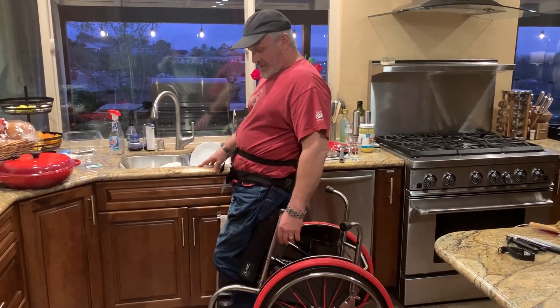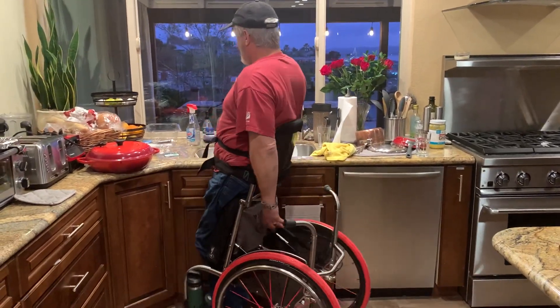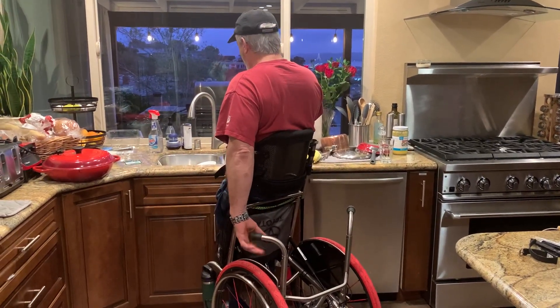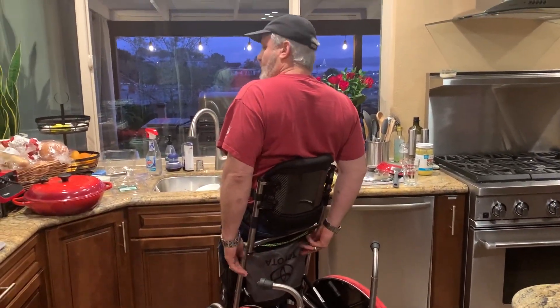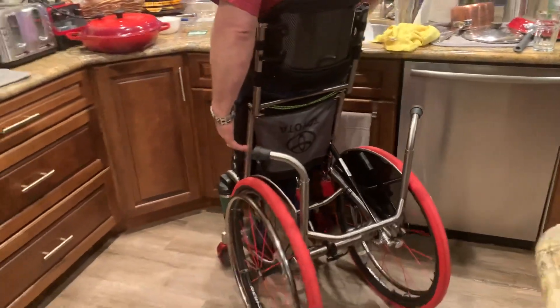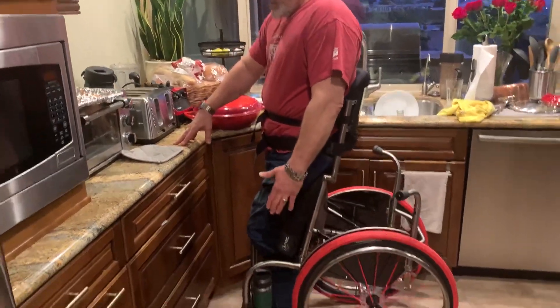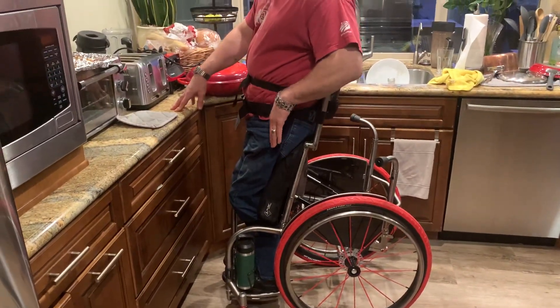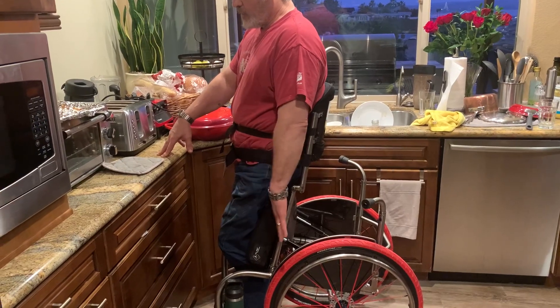It's a very minimalist standing chair. You can move around the place, you're up at a good position. My cushion stash where I put my phone dropped — one of my little bottles. There's a two-pocket thing and unlike my other chair, it's not hanging down looking scrappy — it's tucked away. A few evolutions on this wheelchair compared to my other one: I've got the footrest back far enough so there's no amount of weight that could have me tipping over the casters.